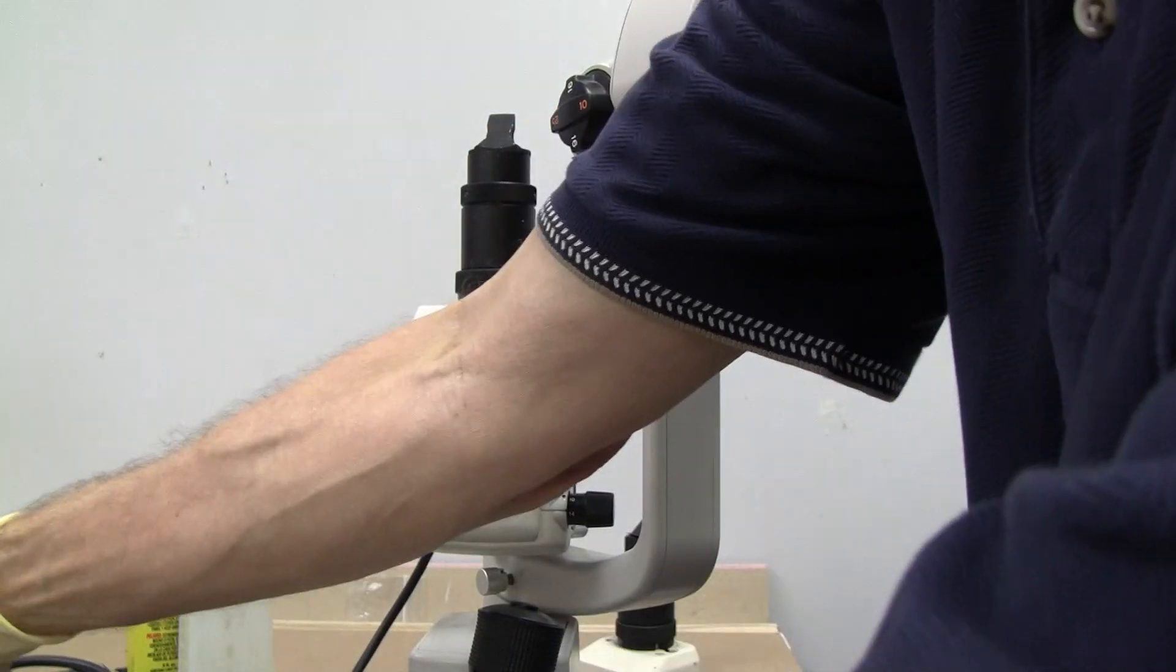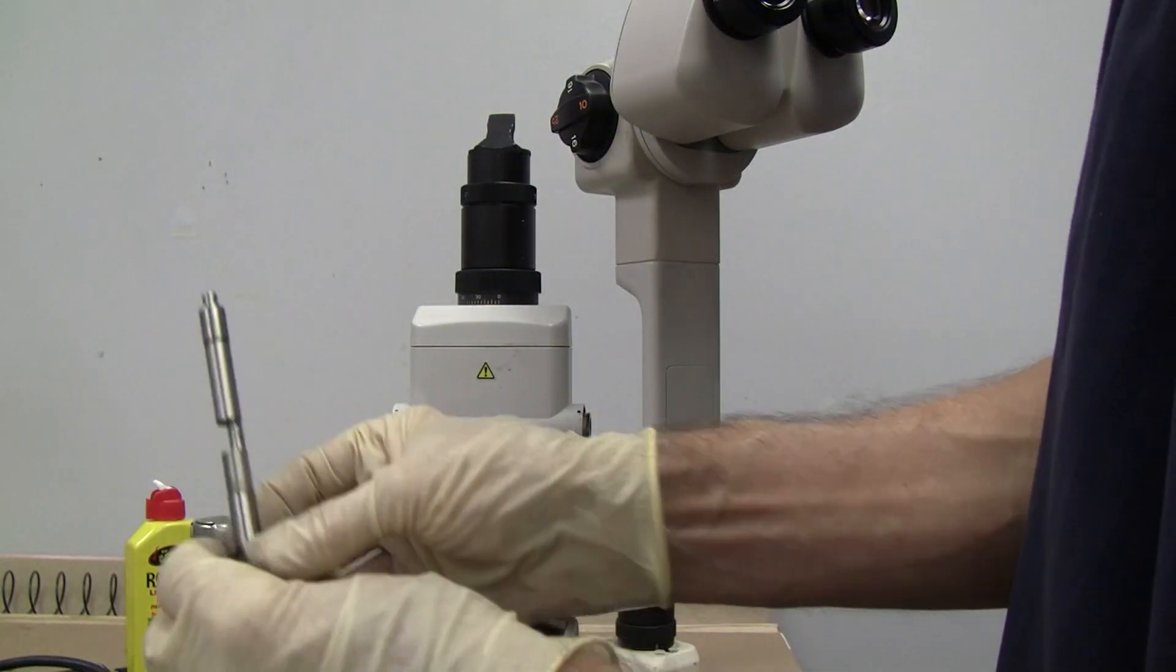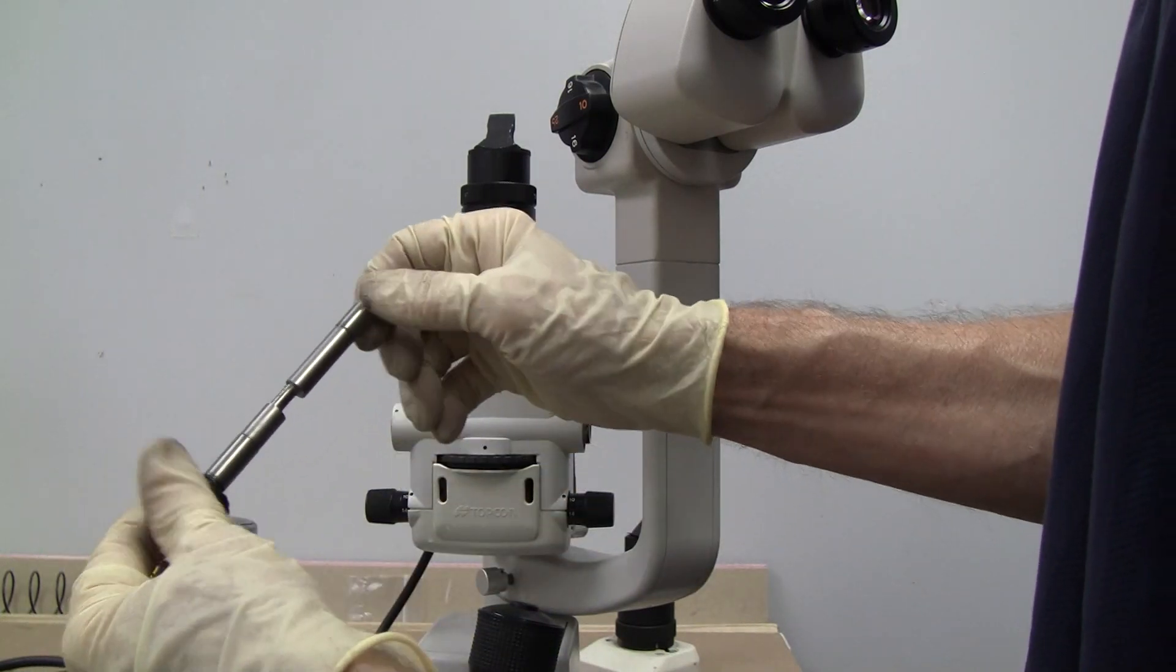which would expose the inside of here to lubricate that. But we're not going to do that right now. First we're just going to try cleaning this axle.